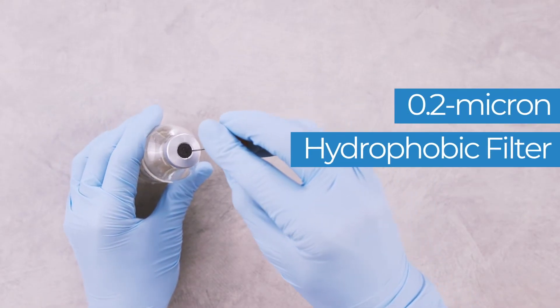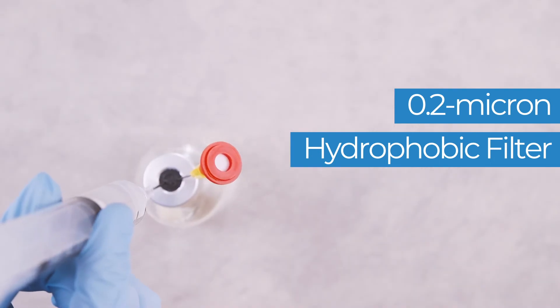The 0.2-micron hydrophobic filter maintains asepsis and prevents toxic, aerosolized materials from leaving the container during filling.